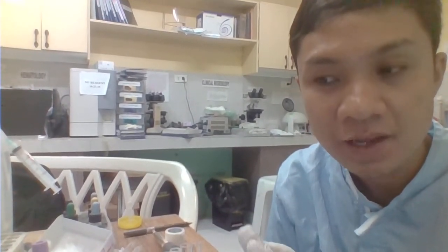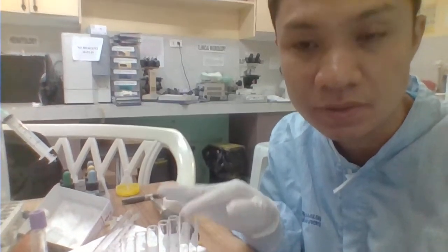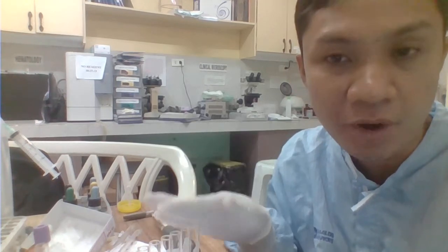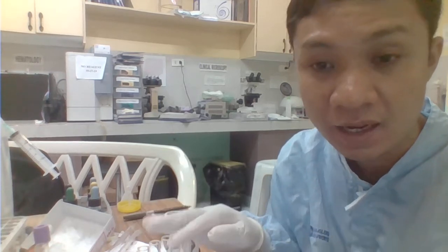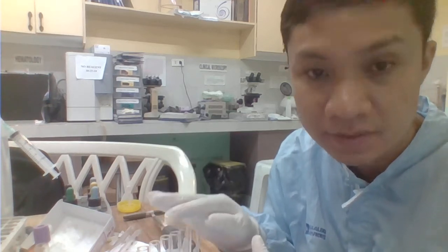Okay, so based on our result here, identify your titer. We identify the titer of your Antisera as the highest dilution na may agglutination reaction, ang reciprocal non that become your titer. So that's need for you then to identify based on our results. It's only here for anti-B Antisera. You could also perform anti-A Antisera, or can also have your anti-D Antisera, determining the titer of that. But based on our experiment, this is only for the titer of your anti-B Antisera. Okay, thank you.